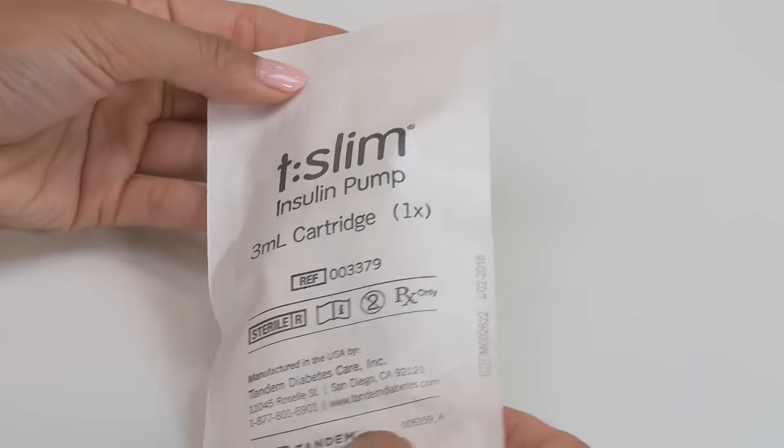This video will show you how to fill and install a new cartridge onto your tandem pump and fill the pump tubing.